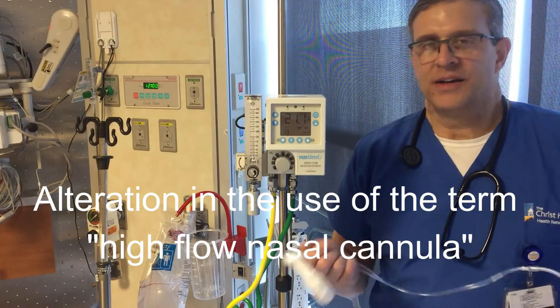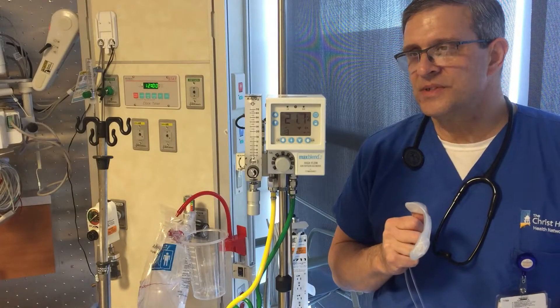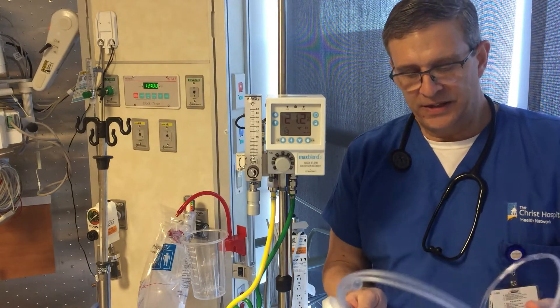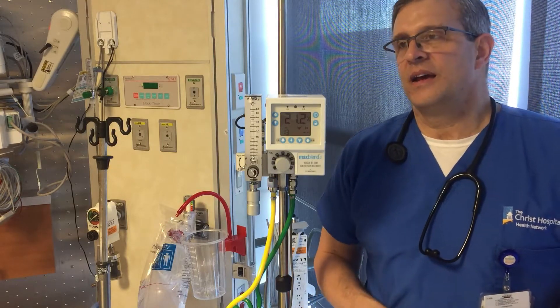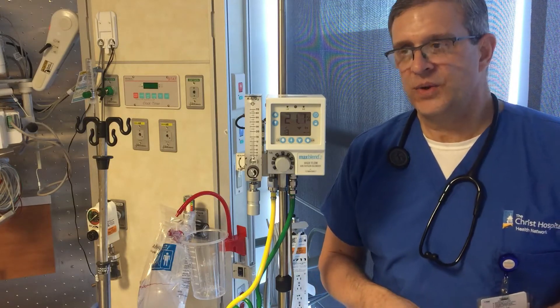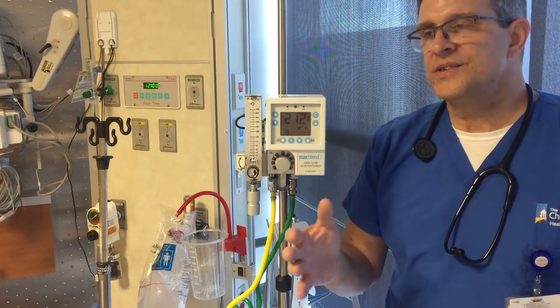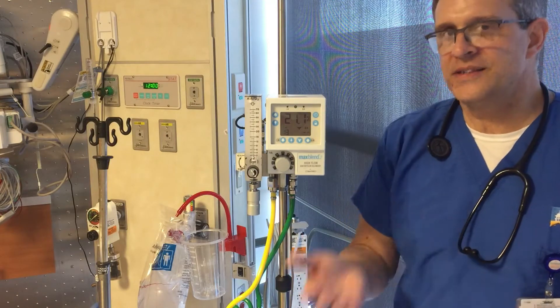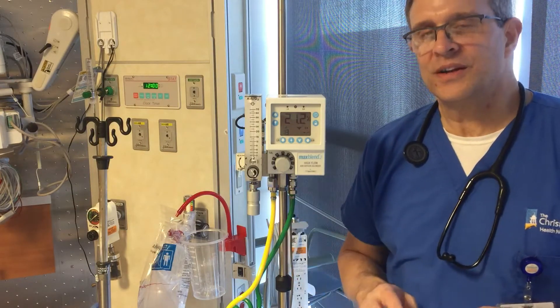Now we're going to talk about nasal cannula systems that we sometimes call high flow systems. We have a standard nasal cannula and those can typically be run up to six liters a minute. If you need to go higher than six liters a minute, they do make a green cannula that looks like a nasal cannula but can handle higher flows — we call that a high flow nasal cannula — but it doesn't fit our definition of a high flow system where you can deliver a specific FiO2.